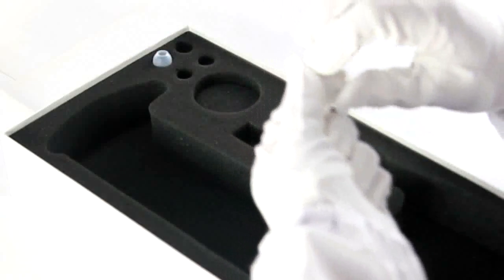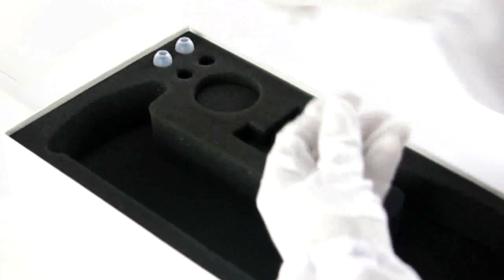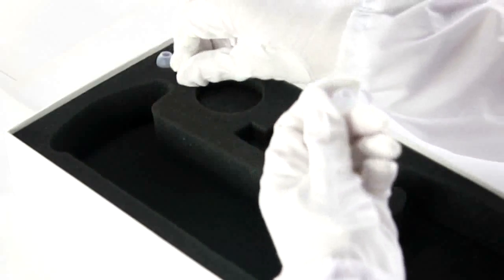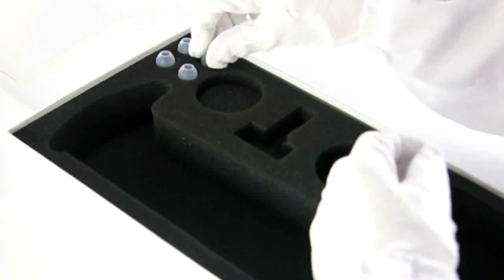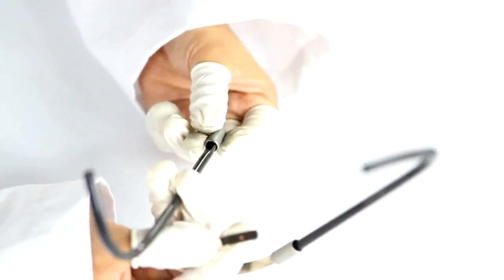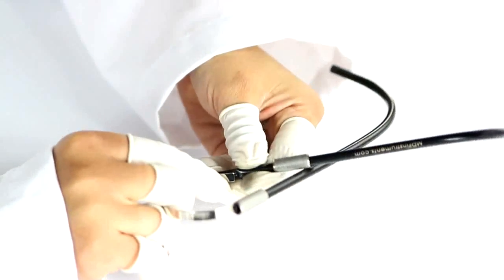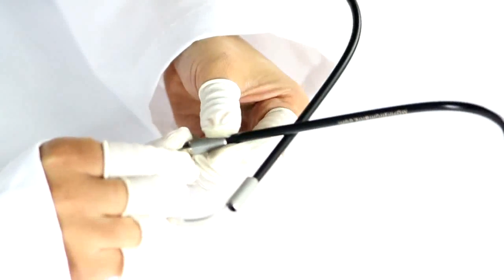We also made the tubes longer and thicker for better sound insulation. Then we made the silicone ear tips softer and in multiple sizes so they're more comfortable for everyone and have a better seal to lock in the sound. And then we completely redesigned the headset so now it has a universal and an ergonomic fit.